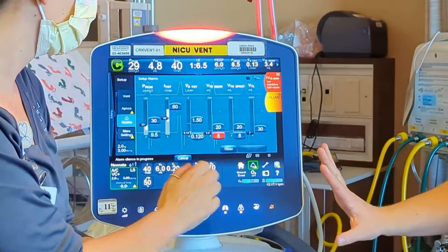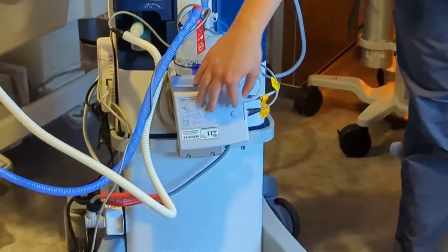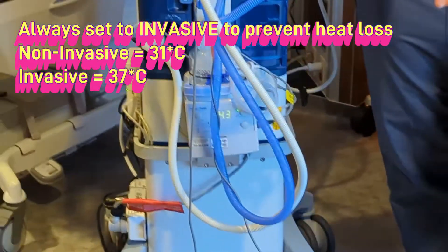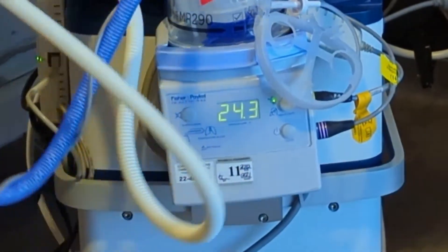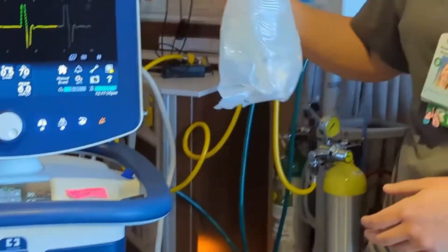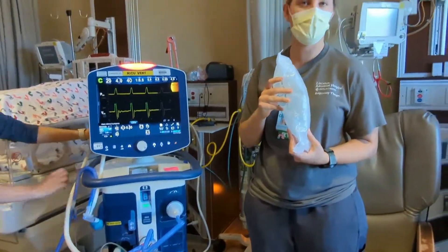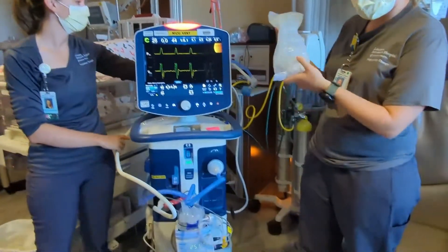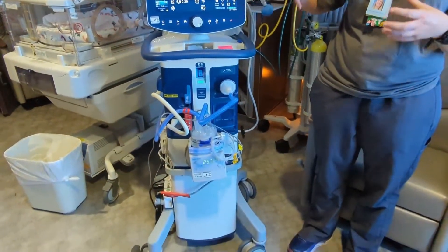With the heater, we're going to have it turned on. There are two different settings: invasive and non-invasive. Non-invasive is 31 degrees; invasive is 37 degrees, so we'll go to 37. We'll always have a water bag hanging from the arm here. When anyone is intubated, we're bypassing their natural way of heating and humidifying air, so we heat and humidify the air being delivered. We try to keep a bag there and one on the back of the ventilator as a spare.